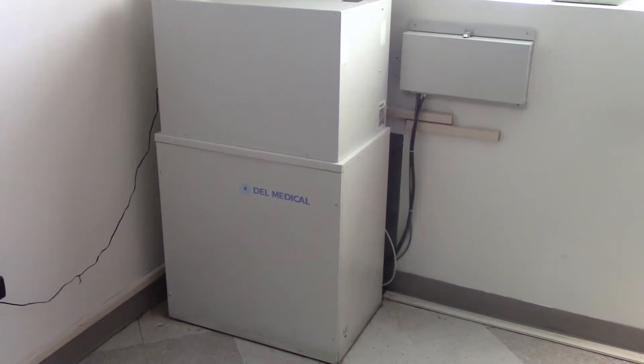What in the heck is inside that thing? Well, let's take a look. I'm not going to show you — you were probably getting all excited thinking I was about to crack open that generator box. Also, 'generator' is kind of a misnomer. We call it a generator, but it's really not that. The actual generator is down at the power station.